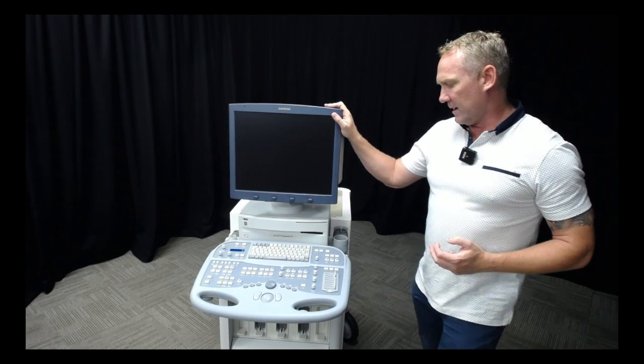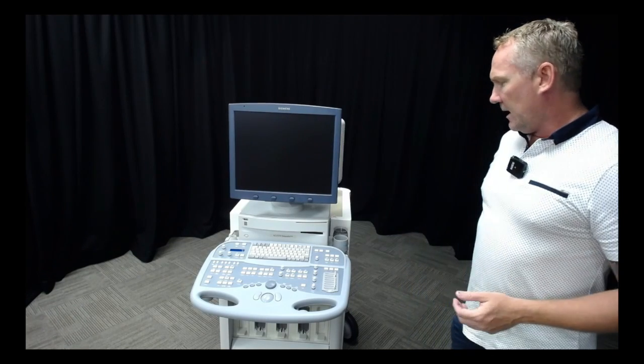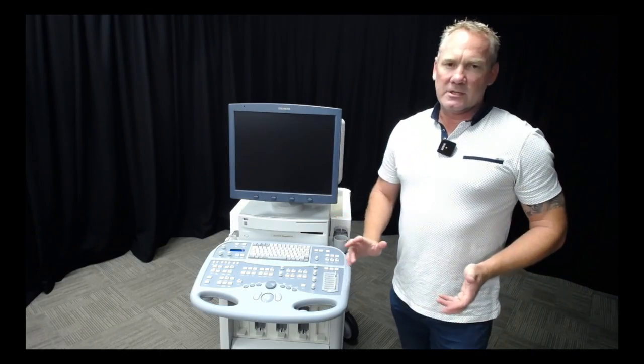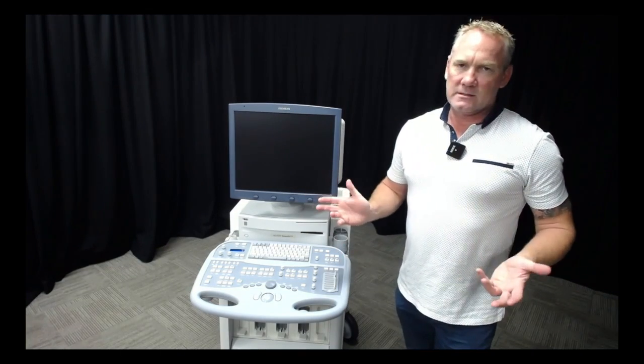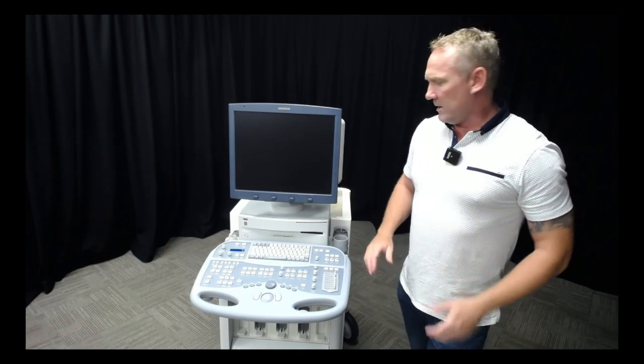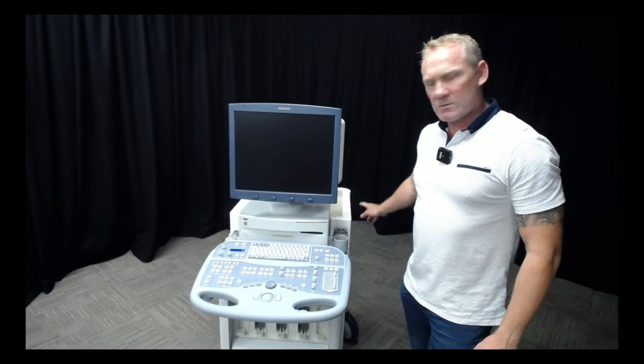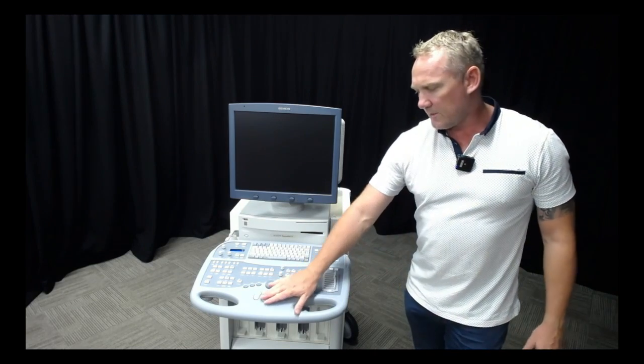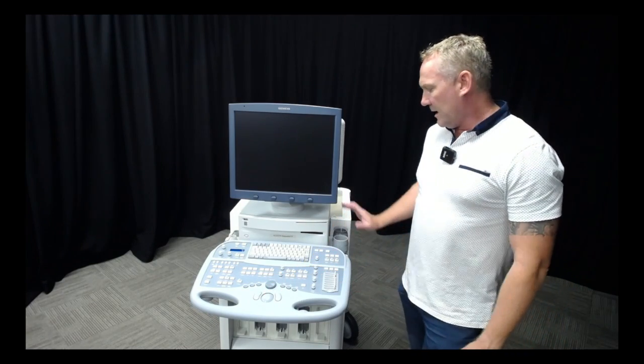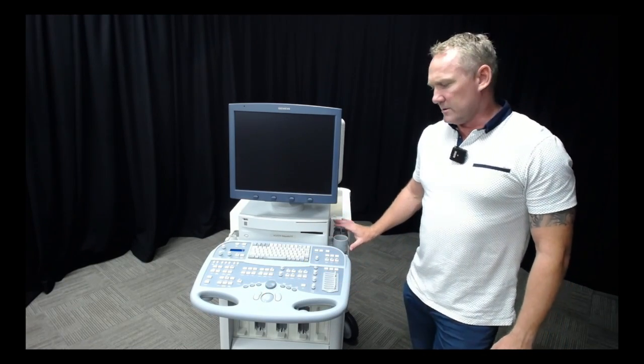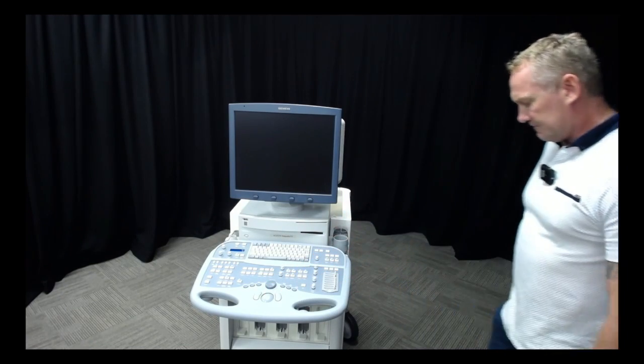No one likes to clean a machine, it's a pain. We don't like to clean our filters. Remember last week we cleaned the filters, tidied up our trackball, and also cleaned up the gel holders.